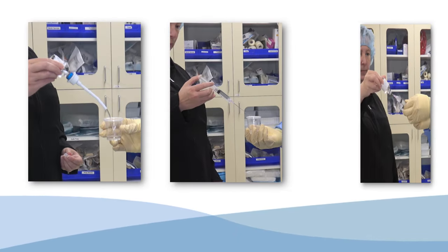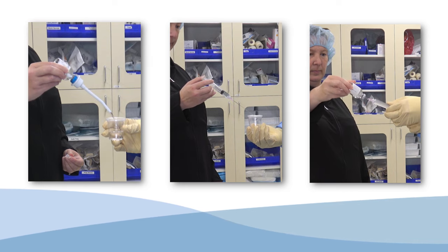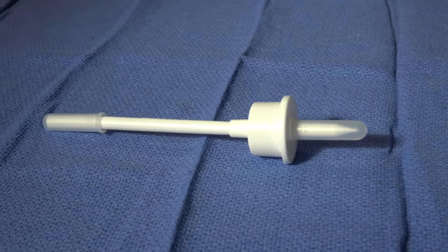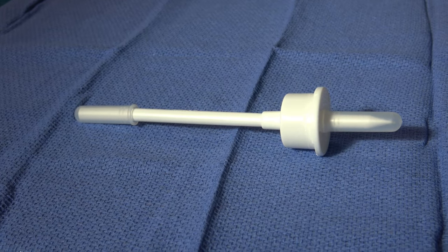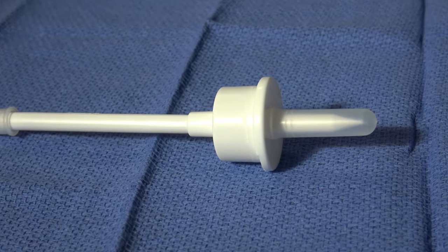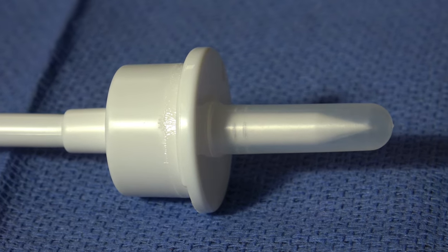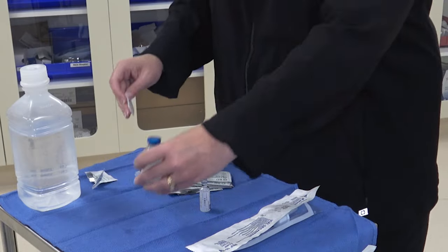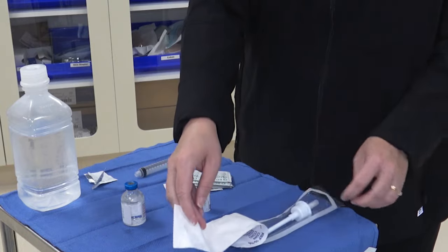There are three approved methods for transferring medication from a vial sterilely. The first method uses a vial decanter to make the transfer. Each end of the new vial decanter is covered by a cap, maintaining its sterility. The circulator will pop the top of the vial, wipe the top with an alcohol pad, and remove the cap from the pointy end of the decanter.